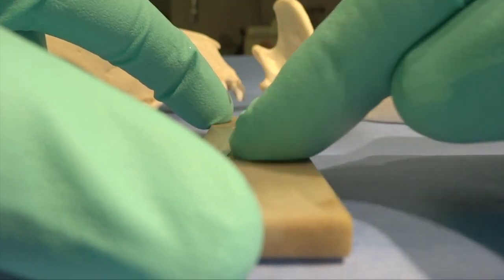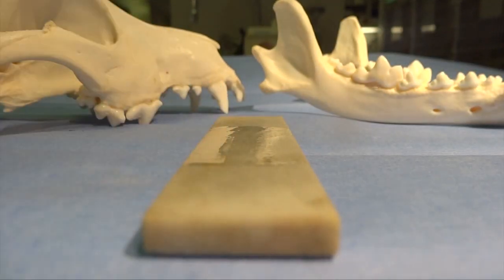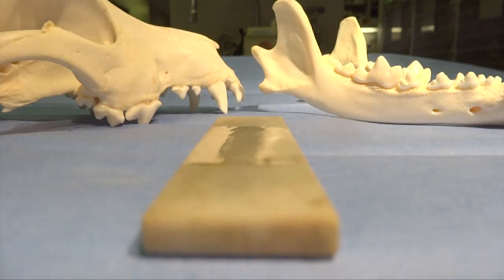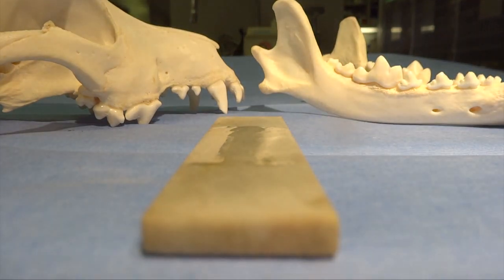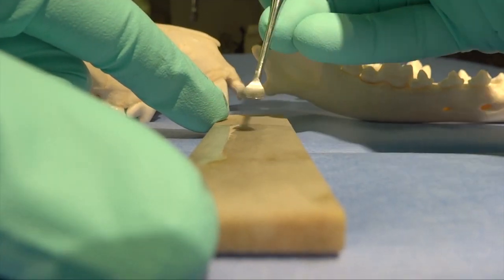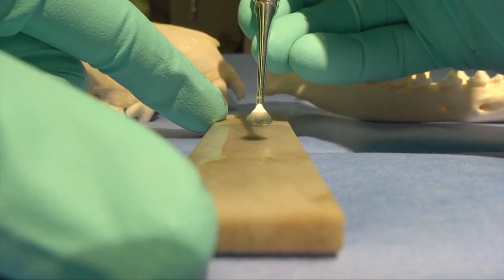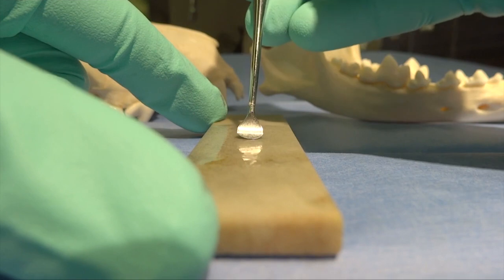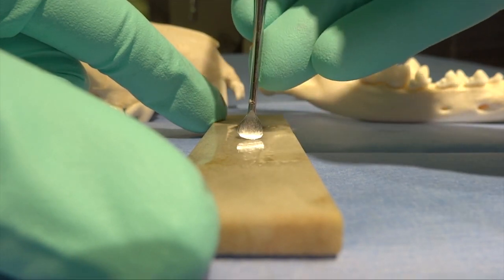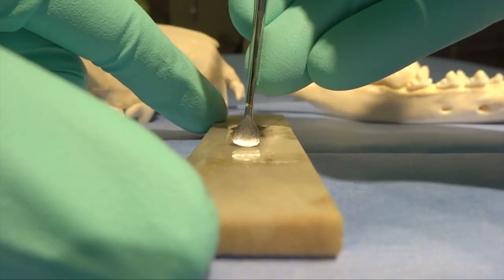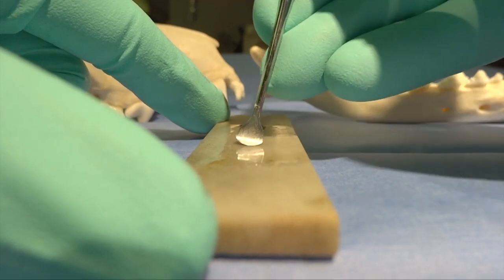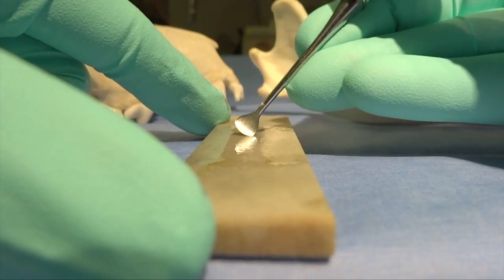When we position the instrument on the stone, we want to have that instrument such that the blade is visible, and we can come down with the blade and eliminate any dead space between the edge of that blade and the stone.